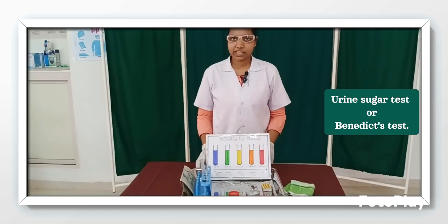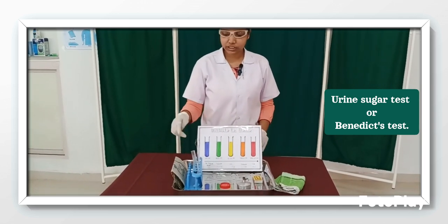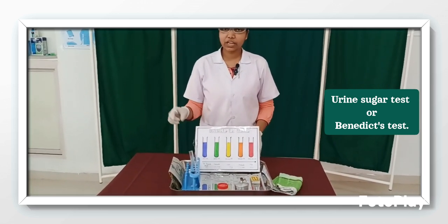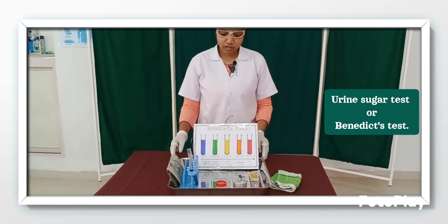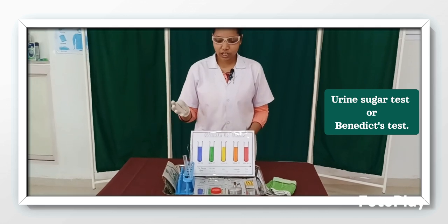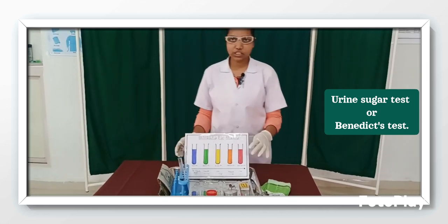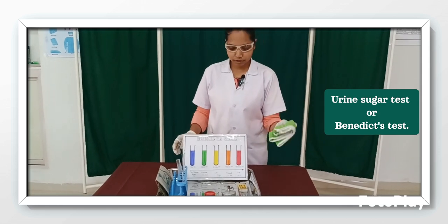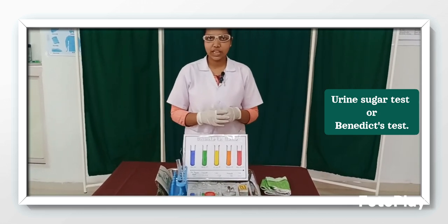So after the test, we have to replace the articles, and we have to wash the test tube with soap and water. Then we have to leave it to dry. Then the specimen we should discard in the yellow bin. Then we have to check if any spillage is there. We have to clean with the towel. After that we have to remove our gloves and wash the hands.